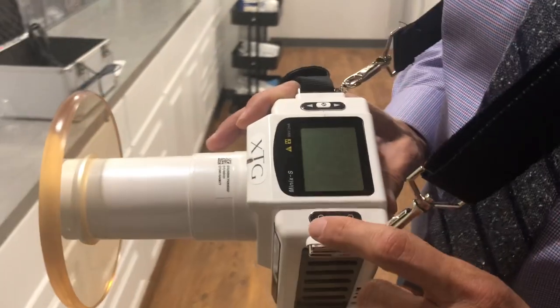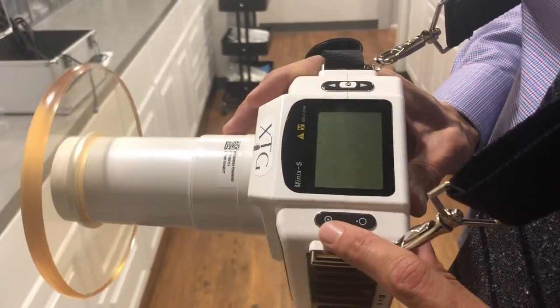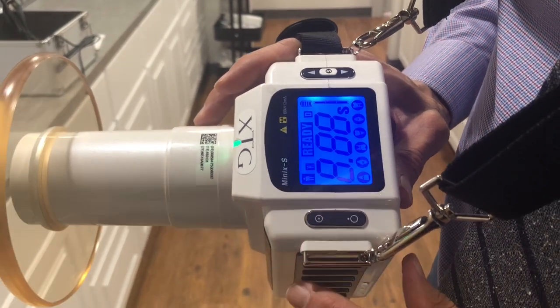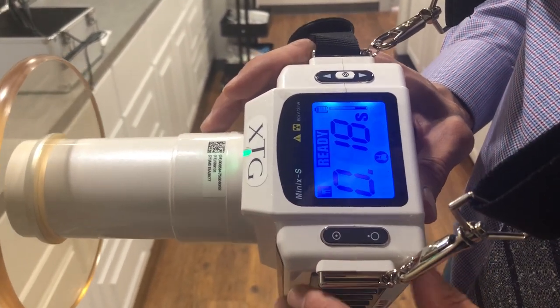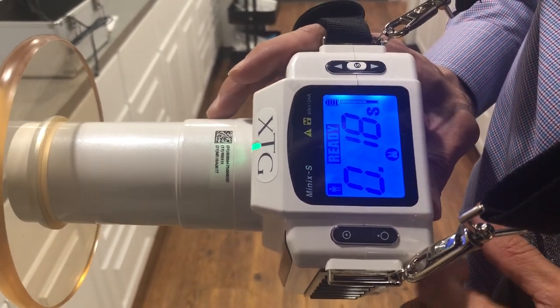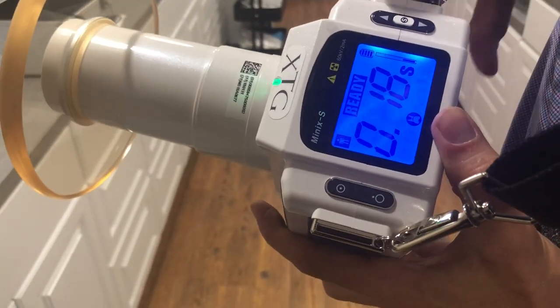To use the unit, I'm going to shut it off real quick and turn it right back on. That's your power on; this is power off. When you power the unit on it's ready to go. Brand new right out of the box, you'll notice it's a full battery charge and I'm set to the digital sensor.